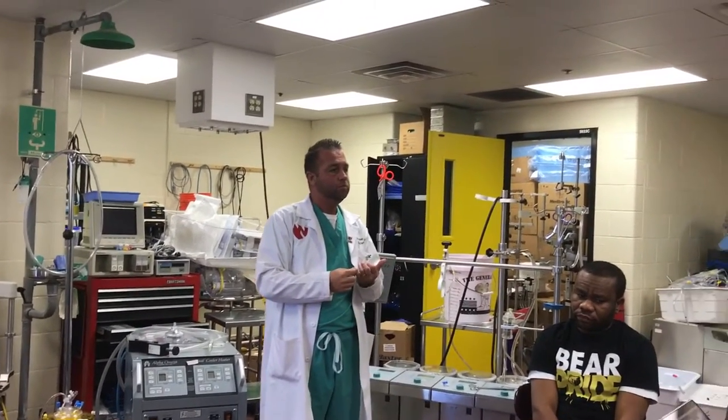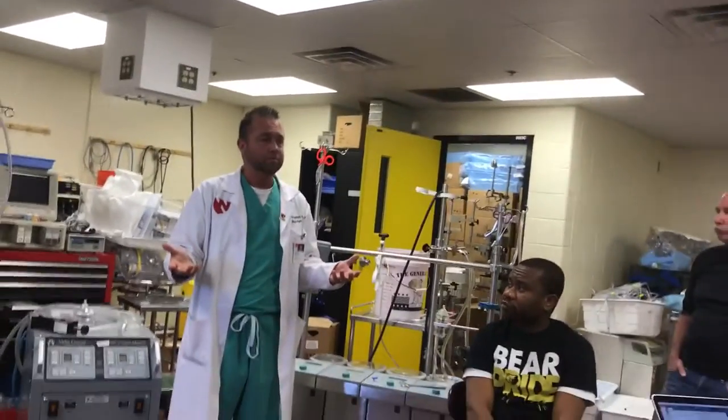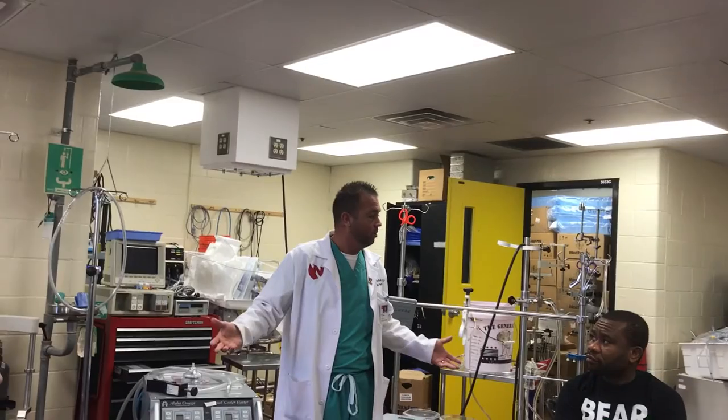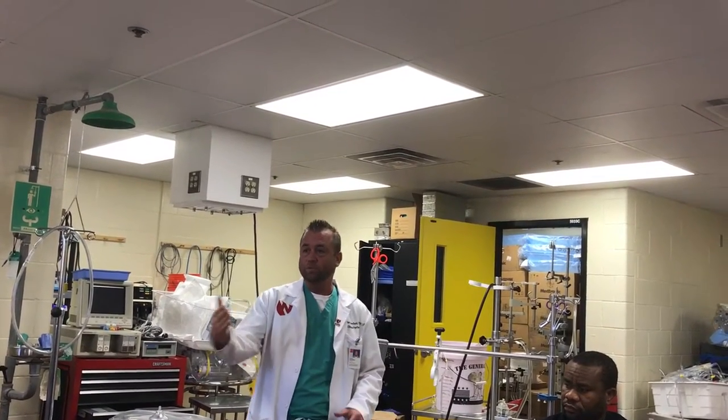Shunt flow and effective patient flow differ because if the measurement point is proximal to the shunts, the measured flow won't equal what the patient actually receives. We can be lulled into thinking effective flow is normal because it matches measured flow, when in fact the patient is receiving less. Our flow probe on the roller pump is proximal to all shunts, so measured flow is very different from effective flow to the patient.